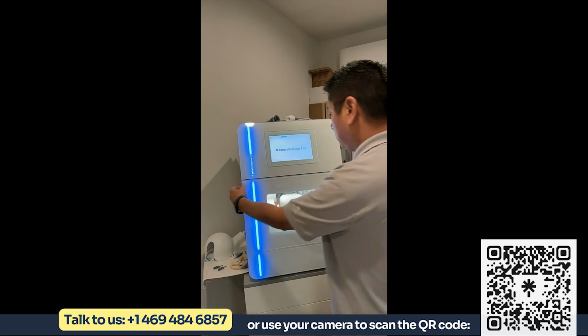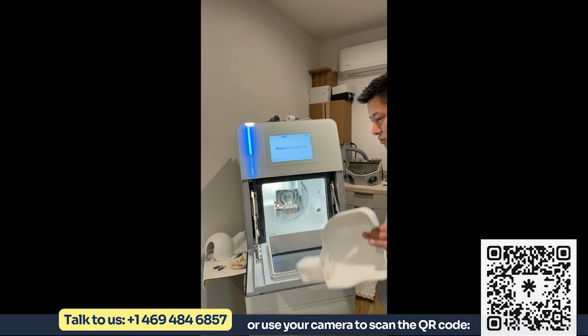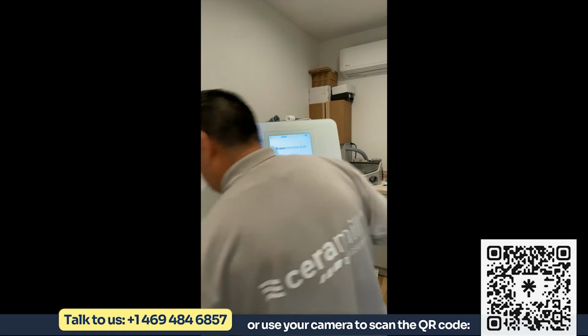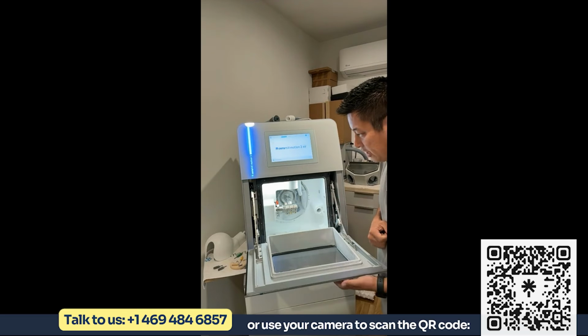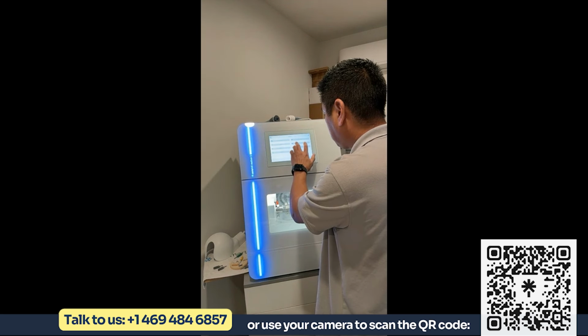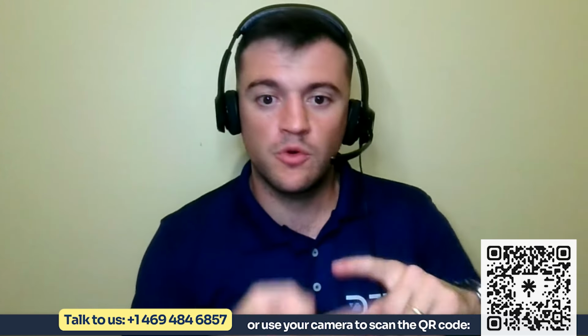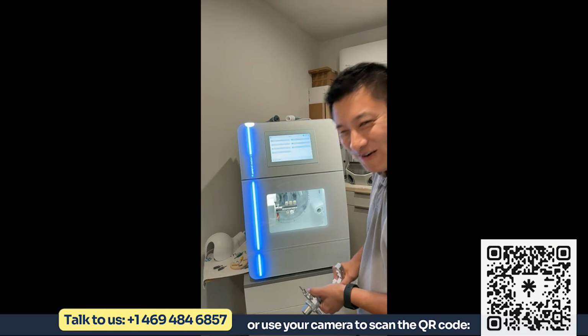And so what we have here is a 5-axis mill, where the arms are interchangeable. Let me show you what that looks like. Brian, just a quick comment there, because there are a lot of names for different spindles. Some people will call them electric spindles, air spindles, water-cooled spindles. Can you just quickly run over what the differences are? I don't know the difference between those.